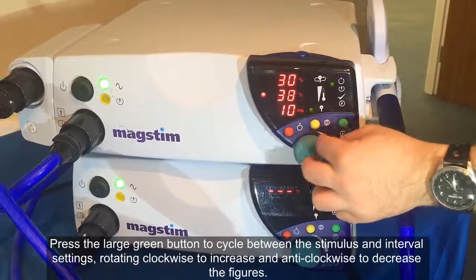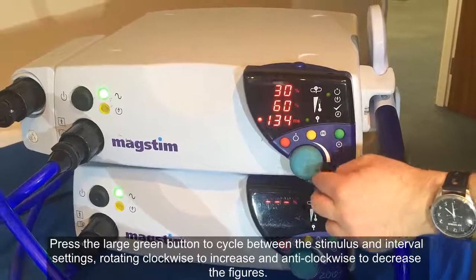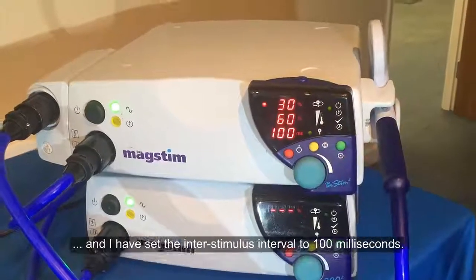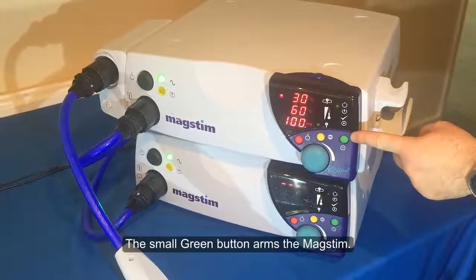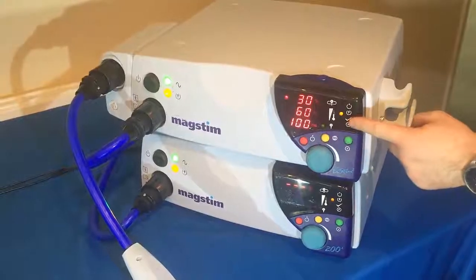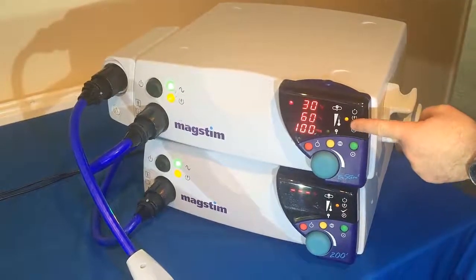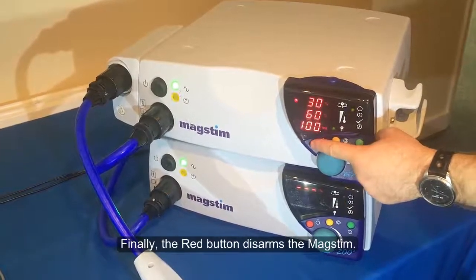Press the large green button to cycle between the stimulus and interval settings, rotating clockwise to increase and anticlockwise to decrease the figures. I have set the primary intensity to 30% and the secondary intensity to 60%, and I have set the inter-stimulus interval to 100ms. The small green button arms the MagStim, and the yellow button fires the stimuli from the coil. Once fired, we wait for the MagStim to come ready for stimulating again, as indicated by the green light next to the tick. Finally, the red button disarms the MagStim.